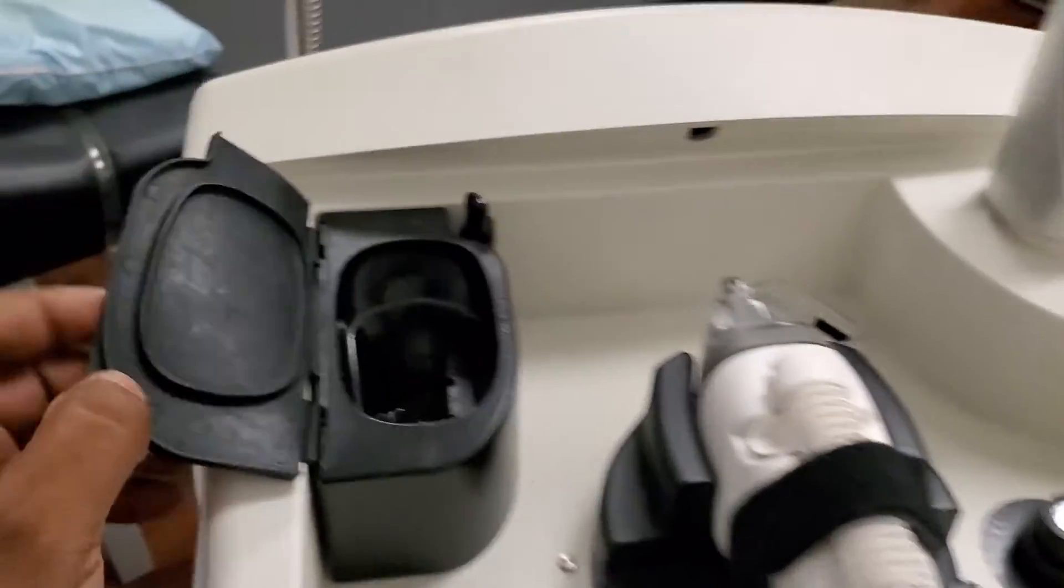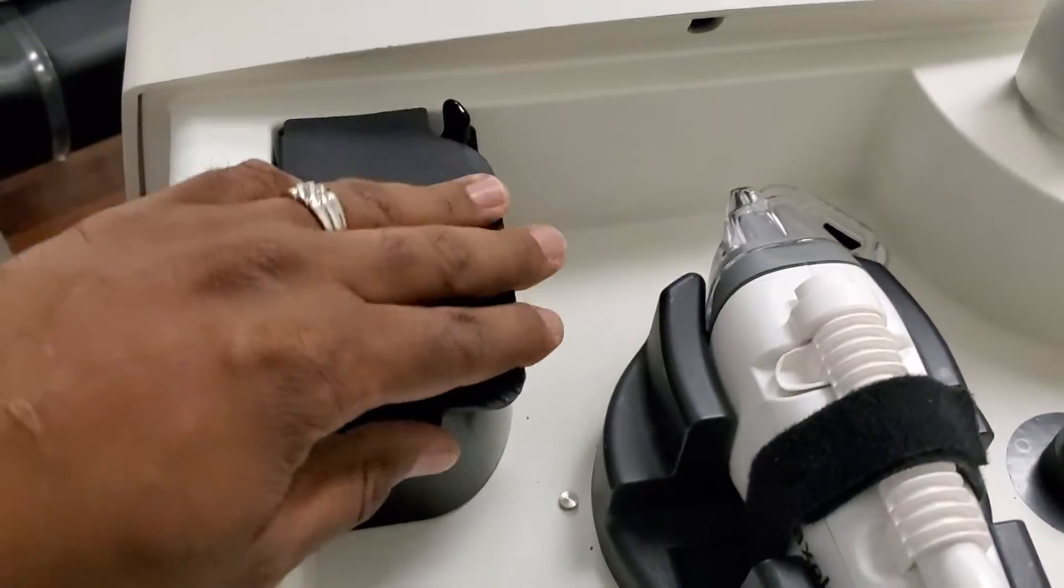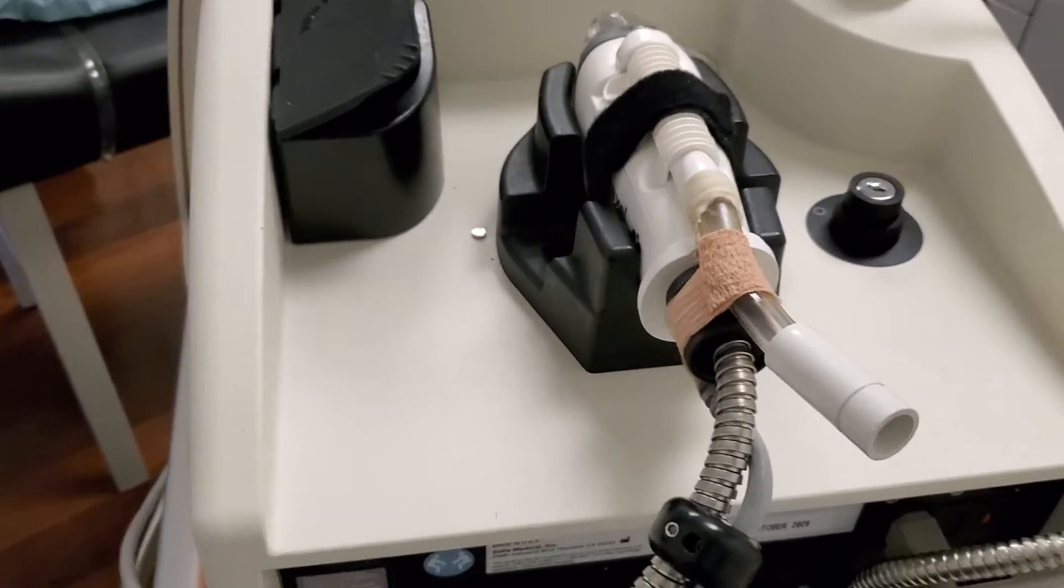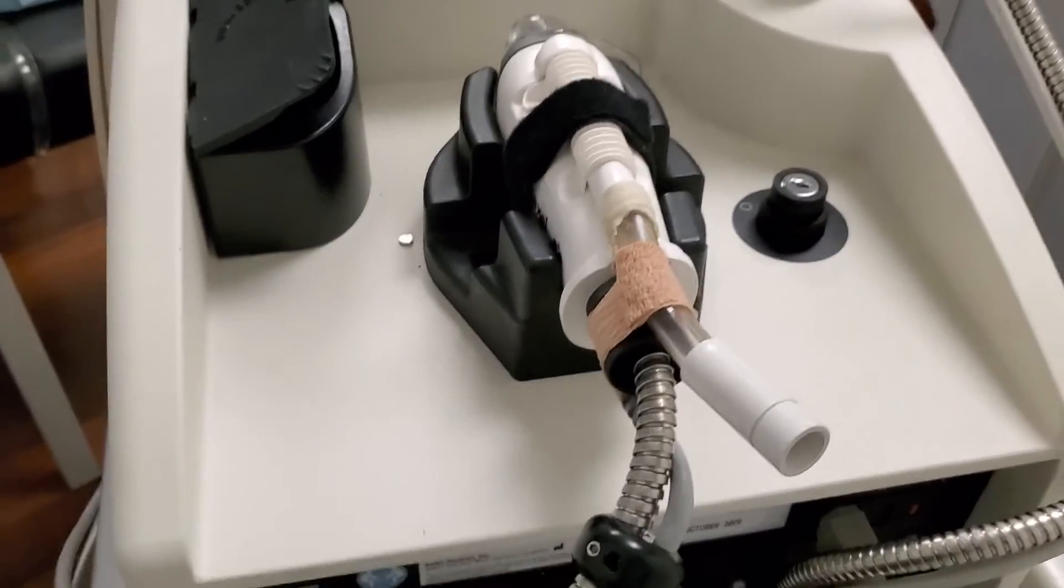Please, again, do not leave it in the holder here because if it gets bumped or anything like that, the handpiece falls out and that's how it will break.